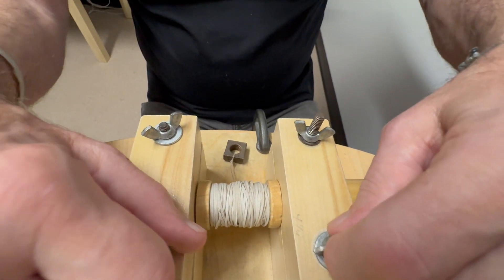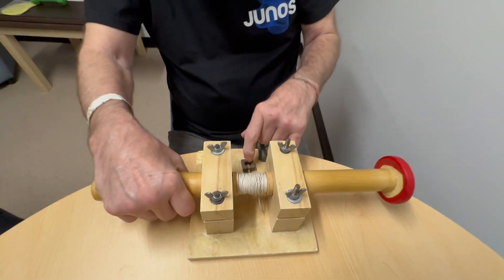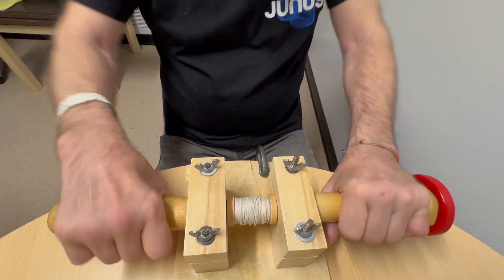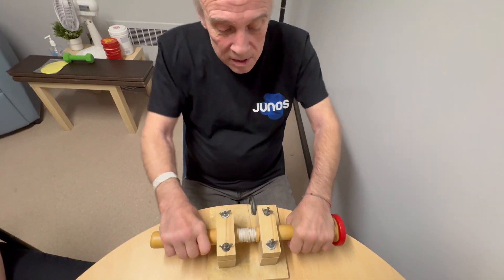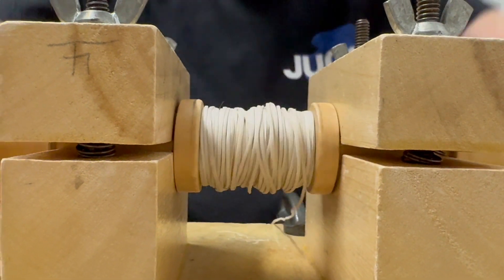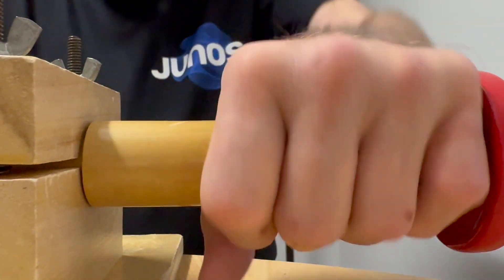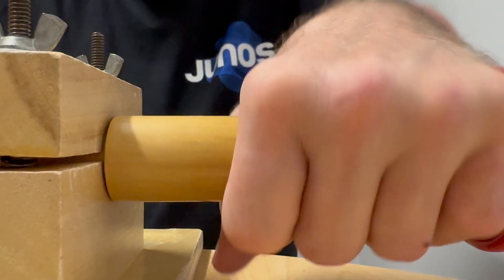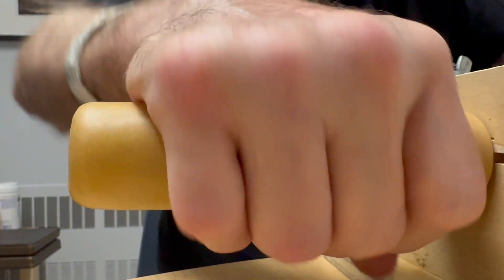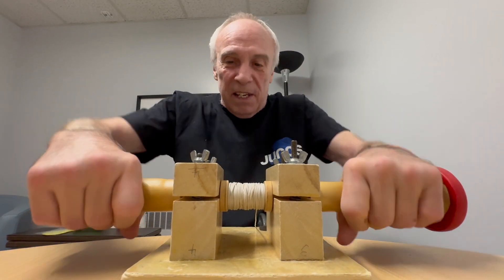These things increase or decrease the tension. So once this thing starts hanging freely, you can alternate hands or use both hands at the same time. We do that for a long time. Gripping both these posts as tight as I can. It's an ingenious little machine when you really think about it — somebody invented it. As you can see, it's a pretty good little workout for your hands and wrists.